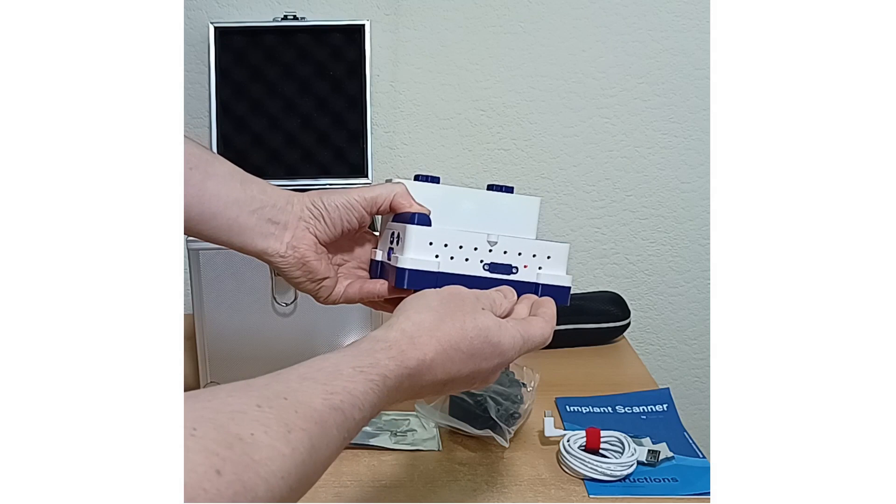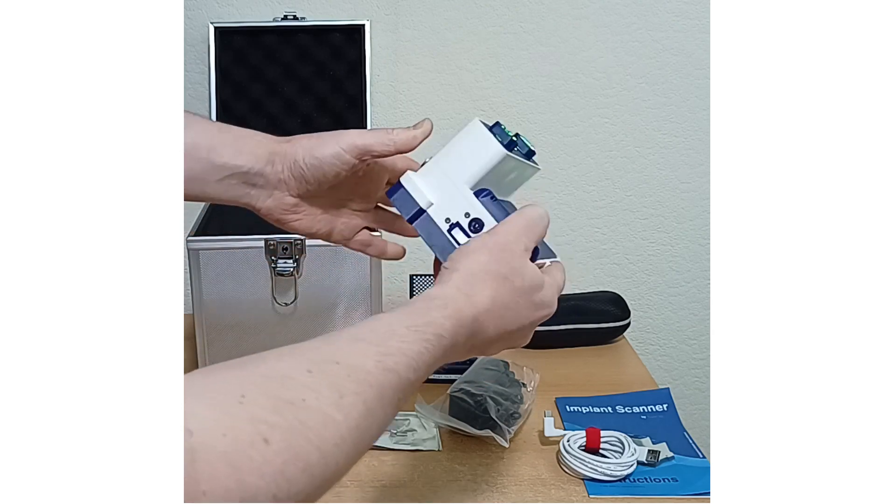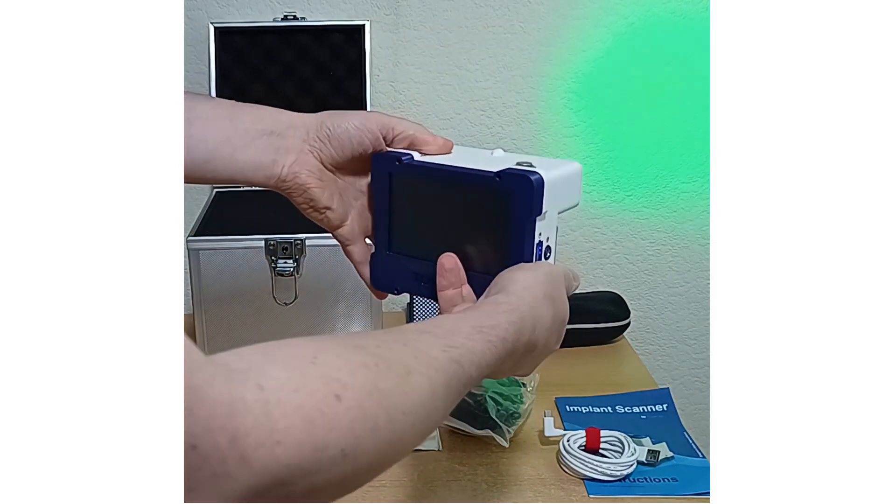On the bottom there's a panel to access the SD card, which holds the firmware, but you should never need to use that.